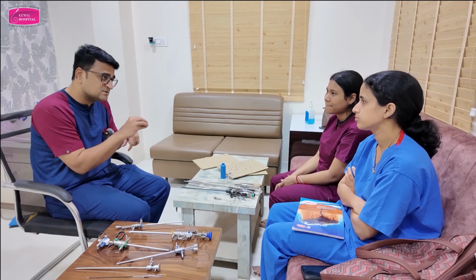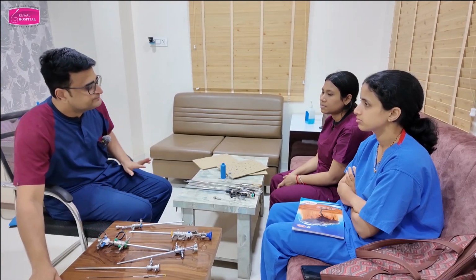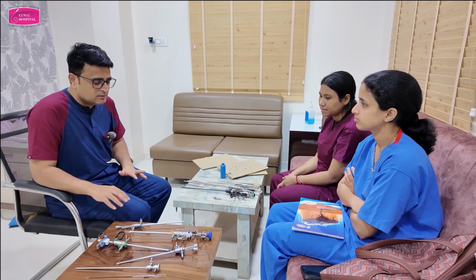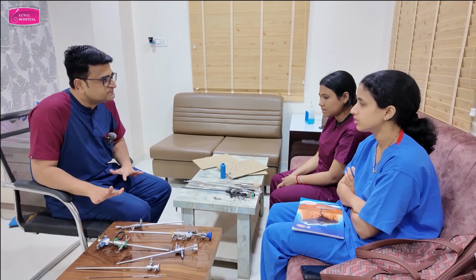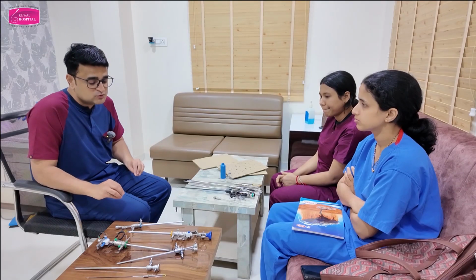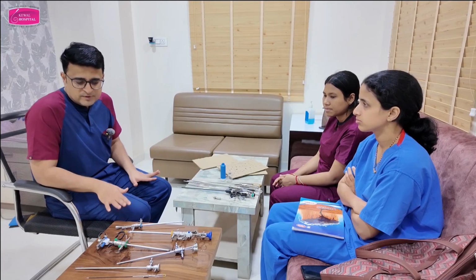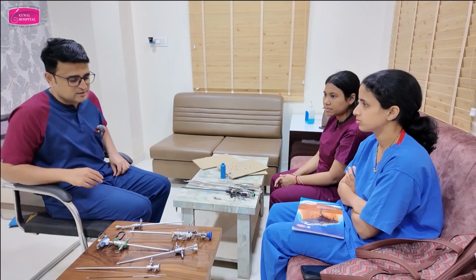Because to understand this is very important. Clear about fluid? Yes. Clear about Hysteromat? Yes. Clear about scopes? Yes. Two types of scopes, 2.9 mm and 4 mm. 4 mm is standard, 2.9 is office. Other types are flexible scopes and smaller diameter scopes, 1.8, 1.9 mm. They are very delicate. I don't personally use them. You can use them. Now we will go to the hysteroscopy model.